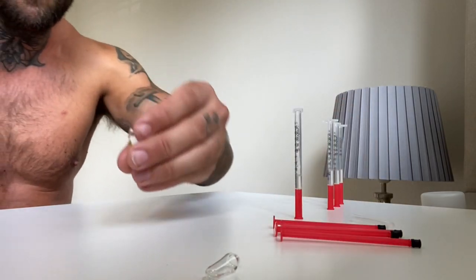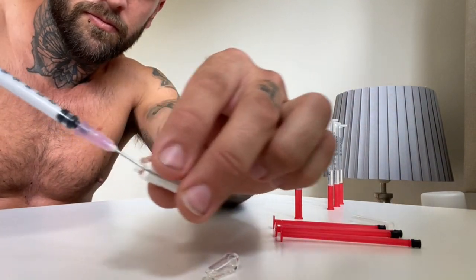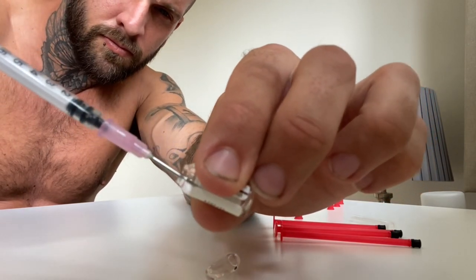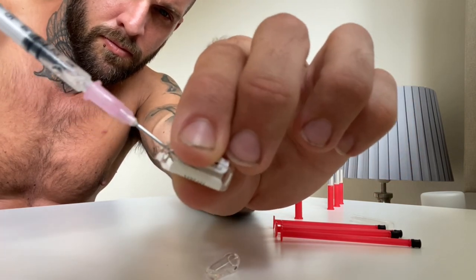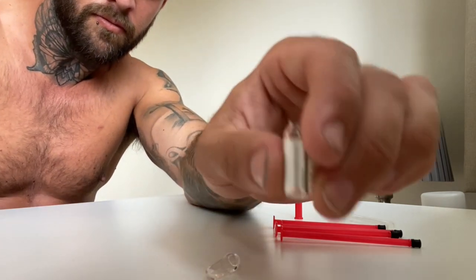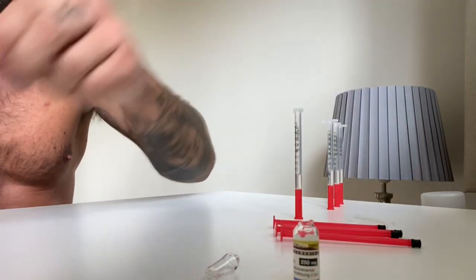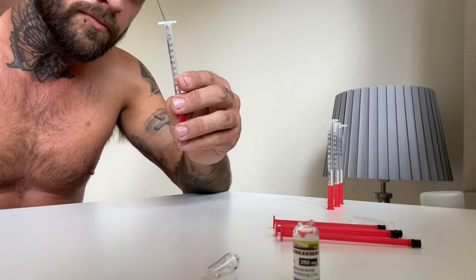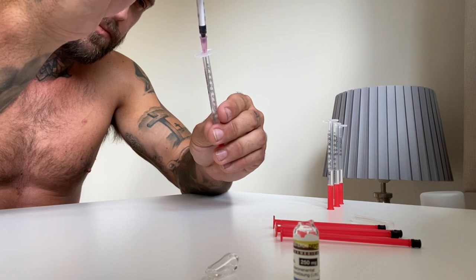If I had the 10ml bottle I'd just go up and withdraw whatever I needed for that day — quick and easy. But flying through syringes with ampoules is more hassle. Here I'm getting out anything left at the bottom of the ampoule and putting it in my last syringe — I really don't want any wastage. This actually makes it up to 0.25ml anyway, so get it out and get it inside you. I'm paying all that money for testosterone — I'm not wasting a penny.